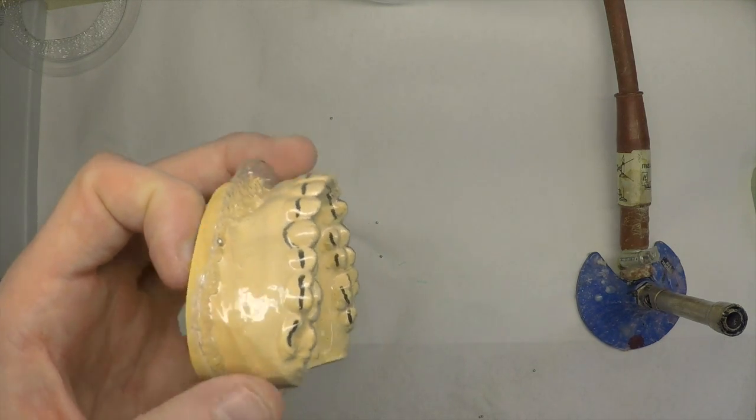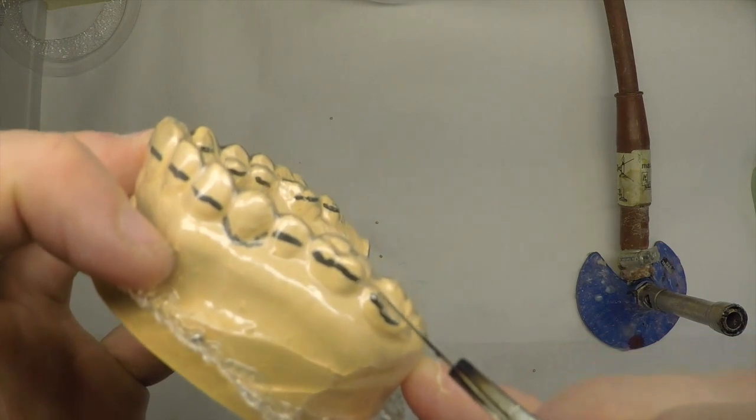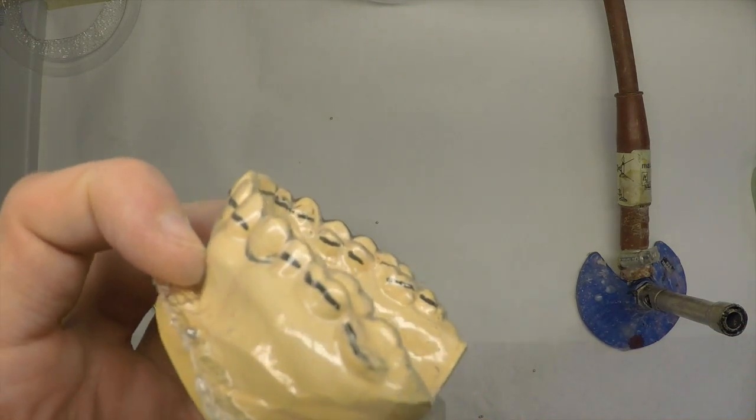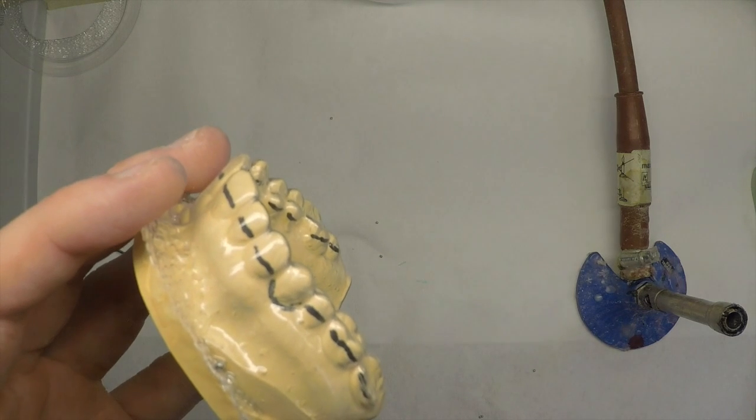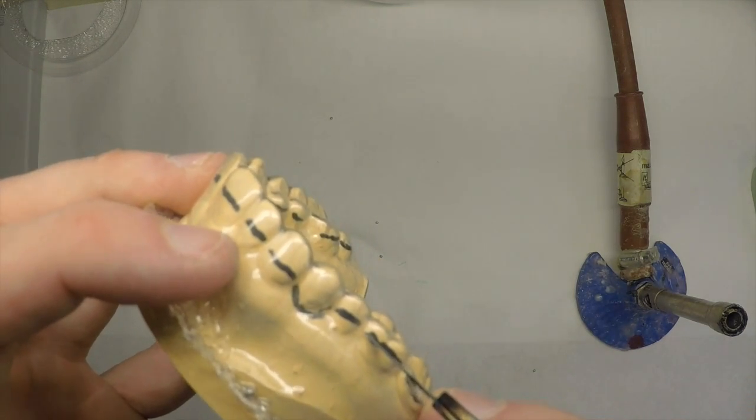Just take some time here. The reason we're using a scalpel is that we can be nice and accurate, especially when it comes to the tooth that we're making the stent for.